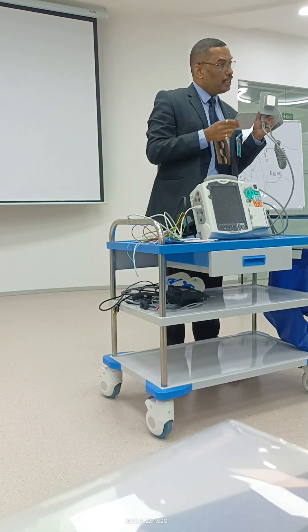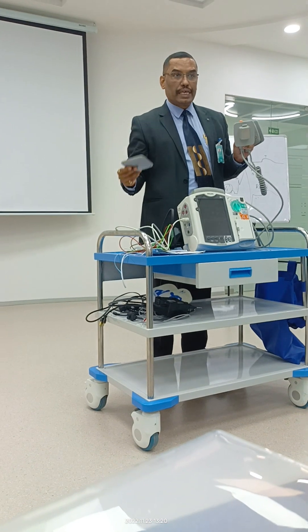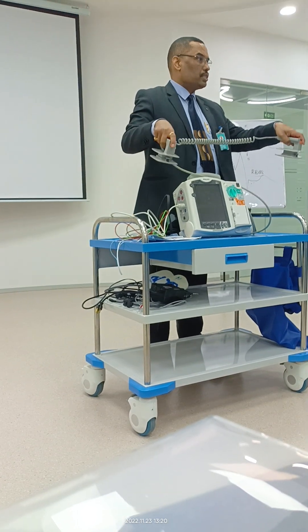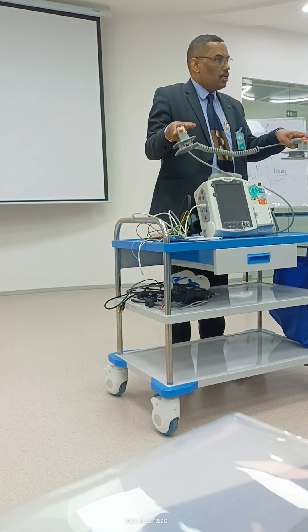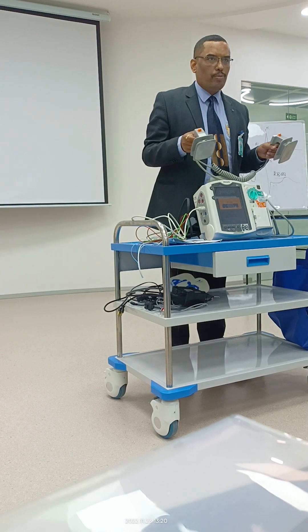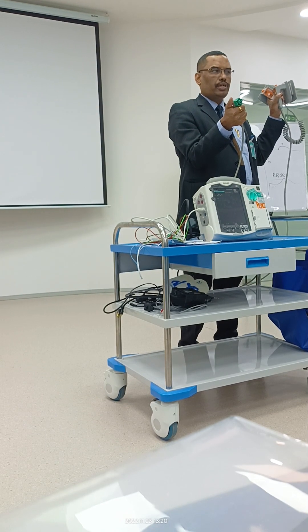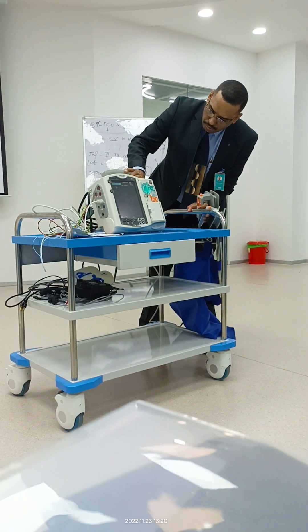For infants, newborns, and pediatrics, we use an energy of 2 joules per kg, up to 4 joules per kg. Now I'm holding it — it should be held like this, not like this. The machine is on — there's an on/off button here. This cable has to be connected to the socket, and there's a lock here — turning it locks or unlocks. Now I'm locking it.